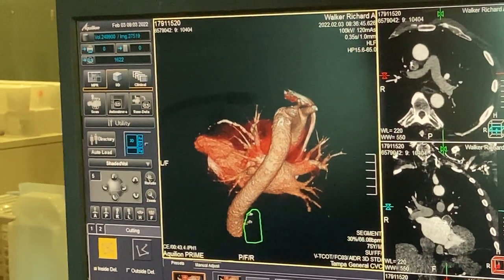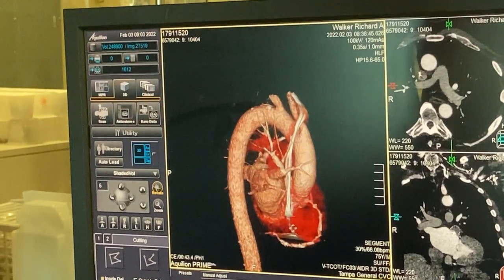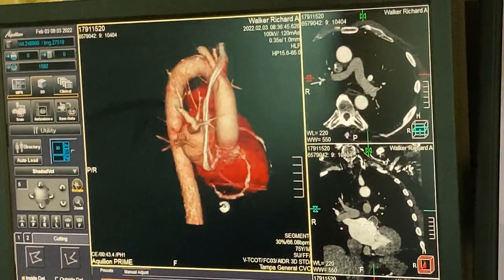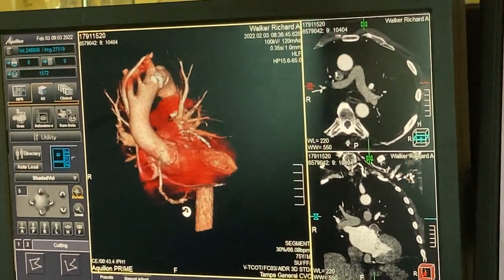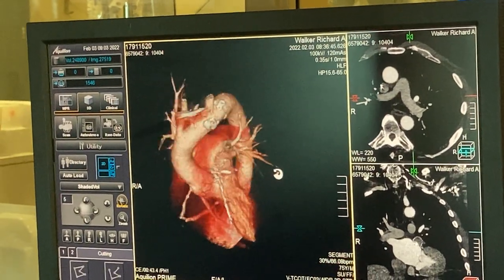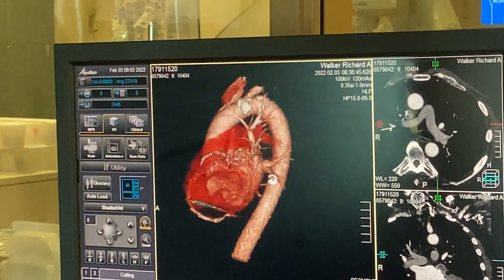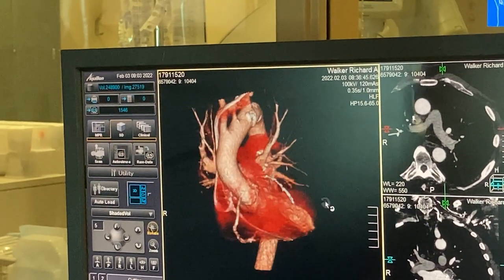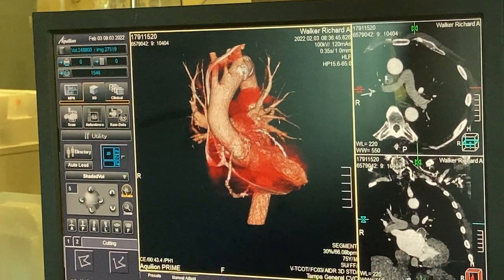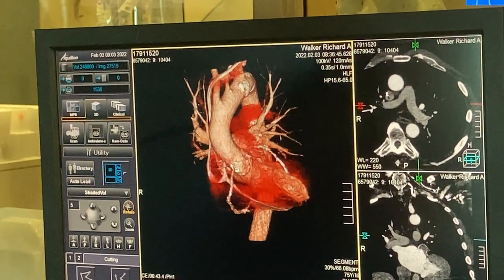So do you have to rotate it in each quarter in order to get all the extraneous stuff out? All that little red fuzz looks like blood vessels — so it is blood. The really white, creamy part here, that's where the contrast is most enhanced. Oh, I see.